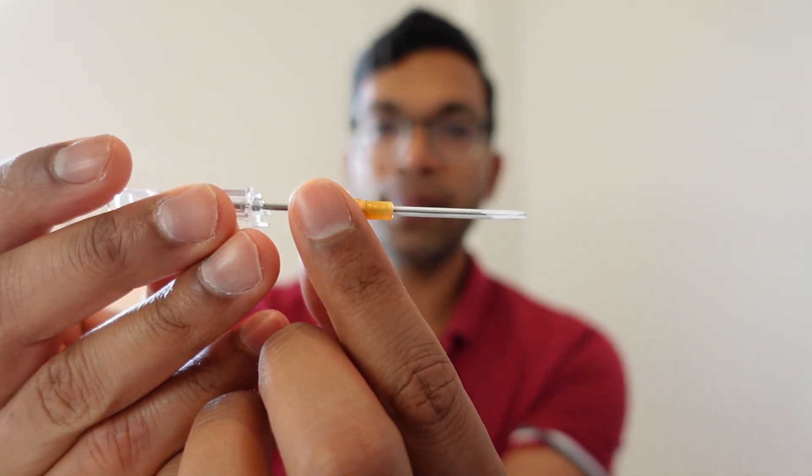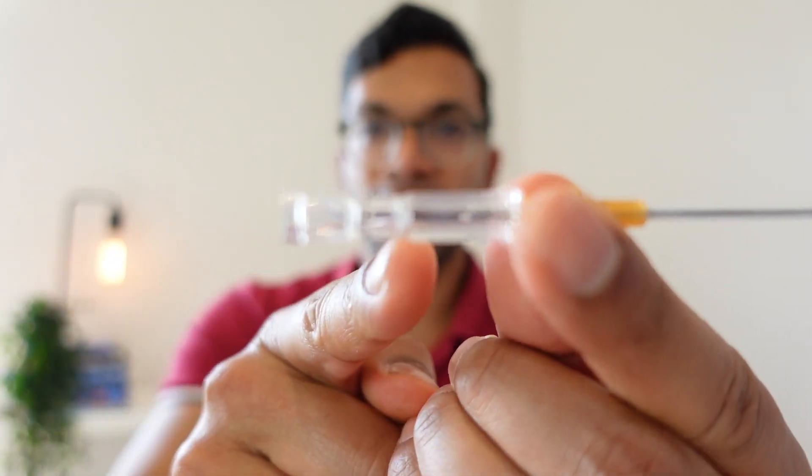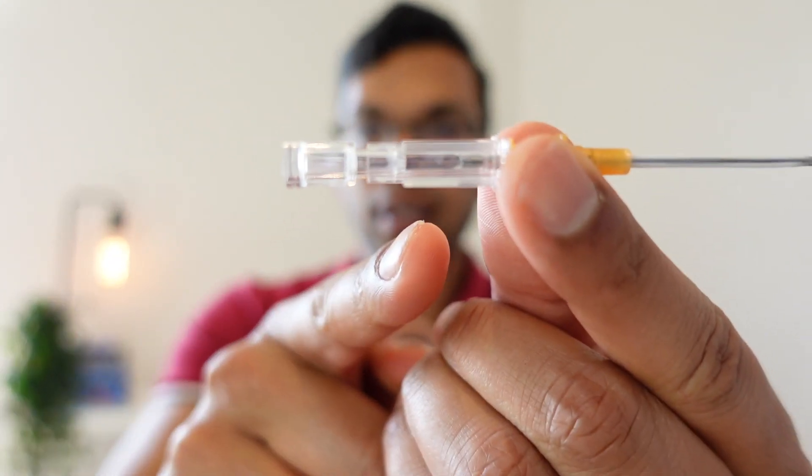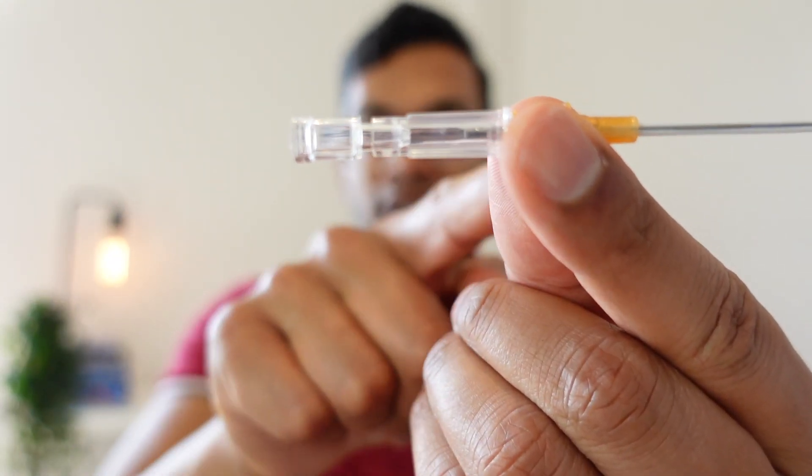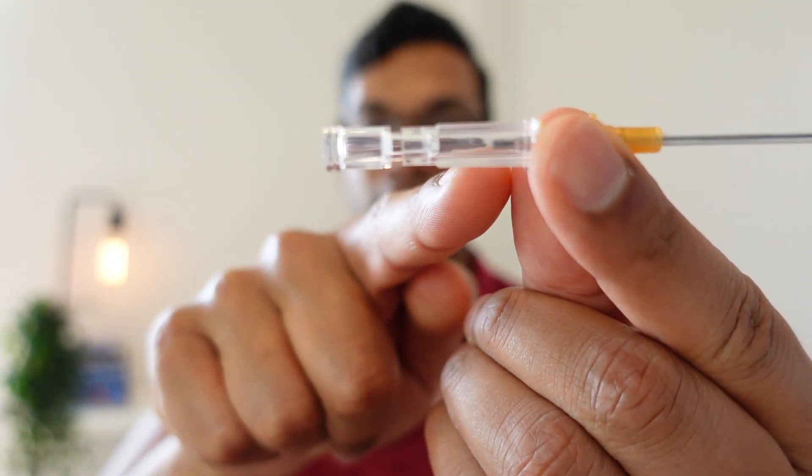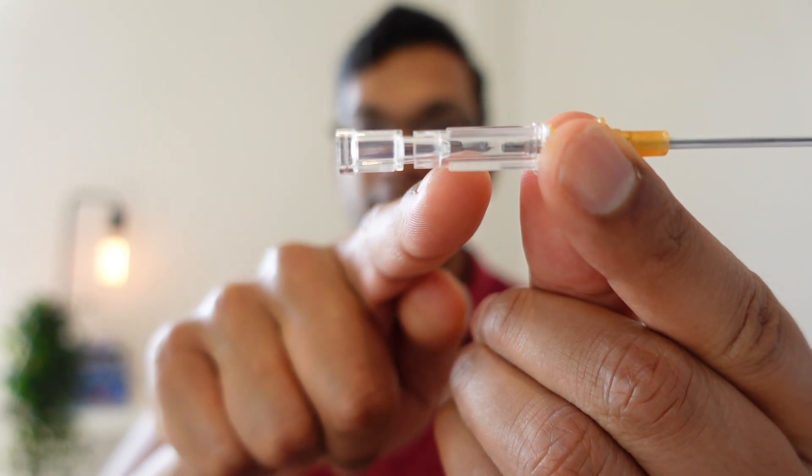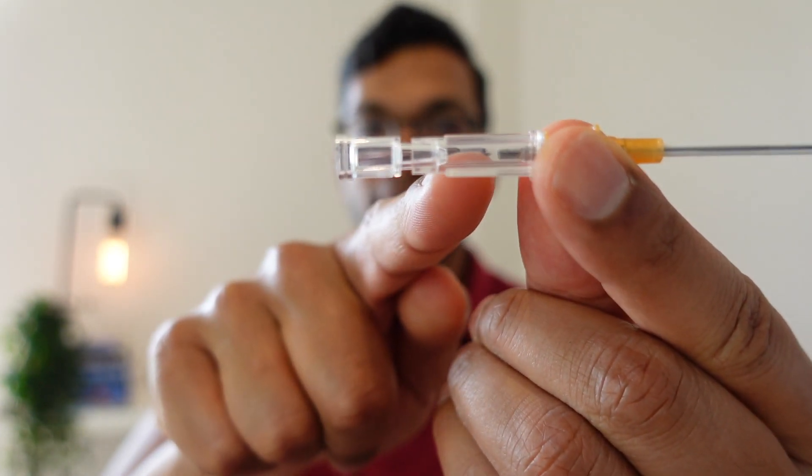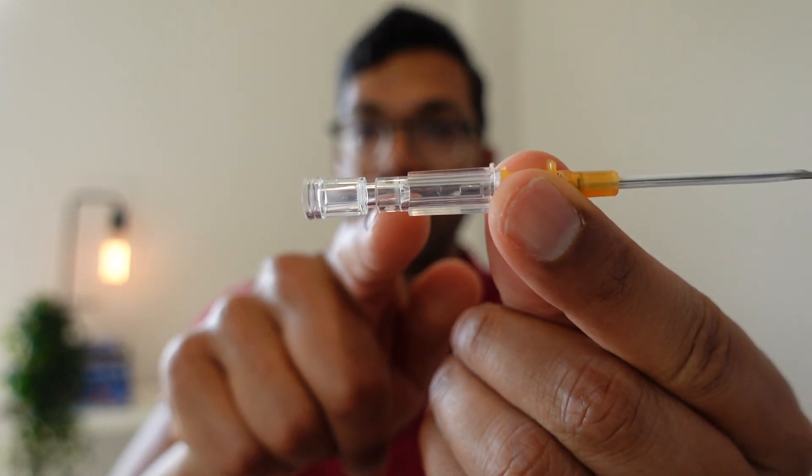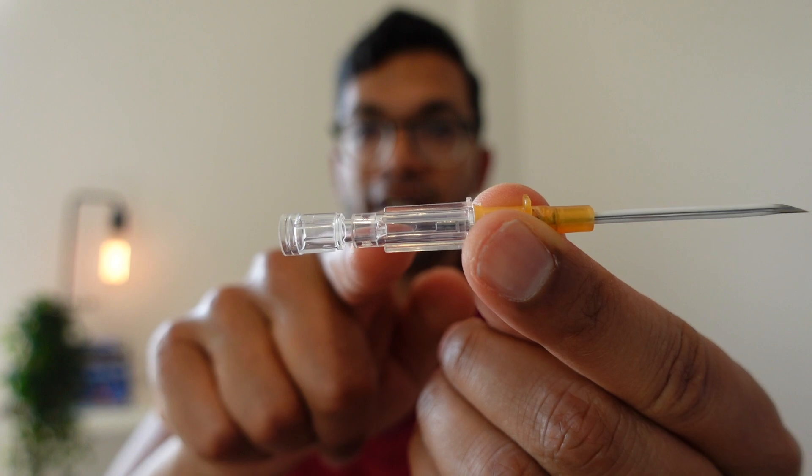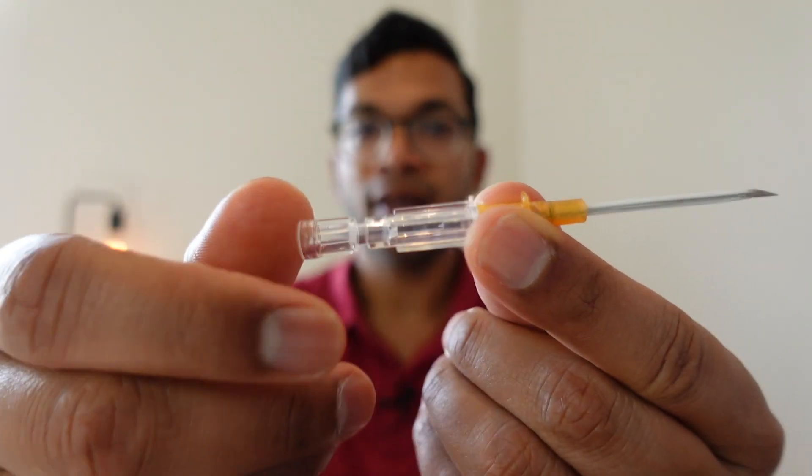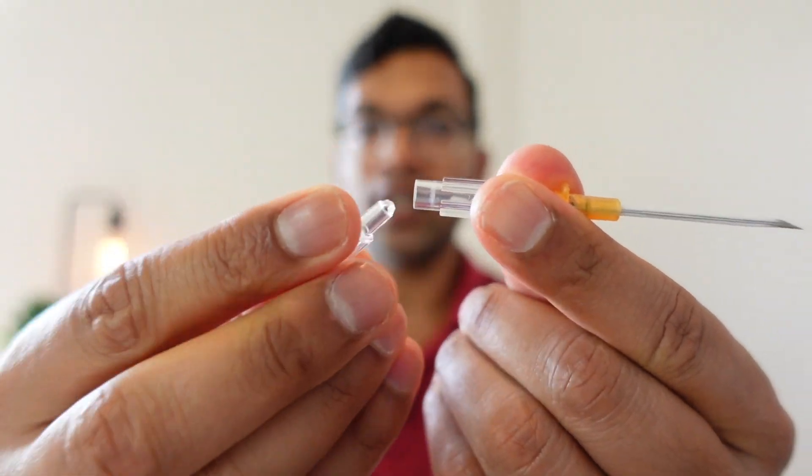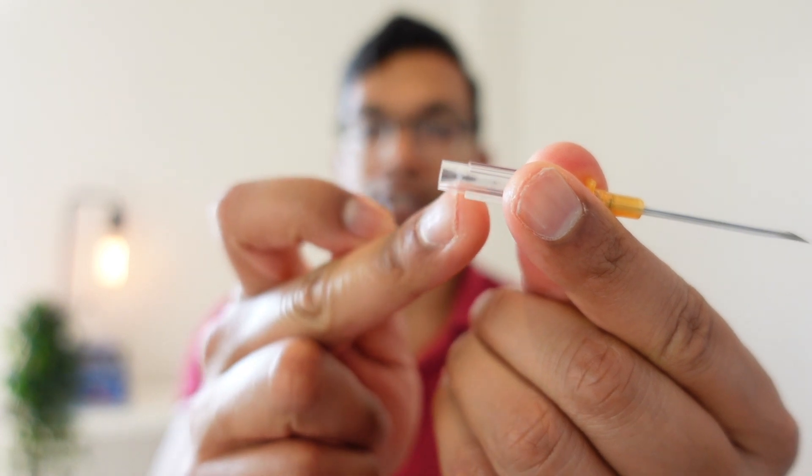And then if you look over here there is this plastic chamber, so the needle itself then feeds into this plastic chamber and that's where you'll see the first flashback, as I call it. So the flashback of blood will appear in that chamber. Now this chamber, you can actually take off this cap.